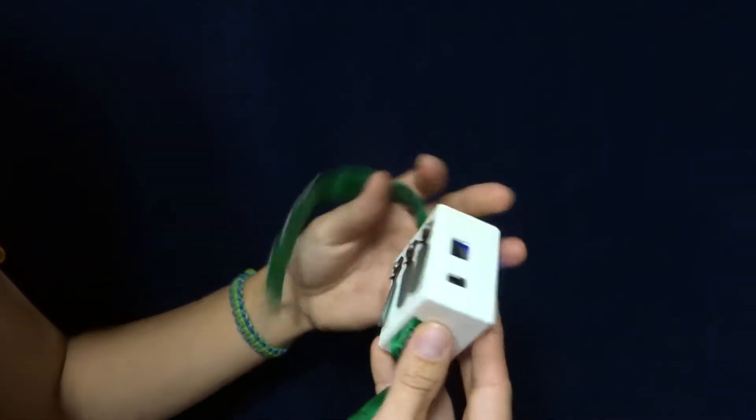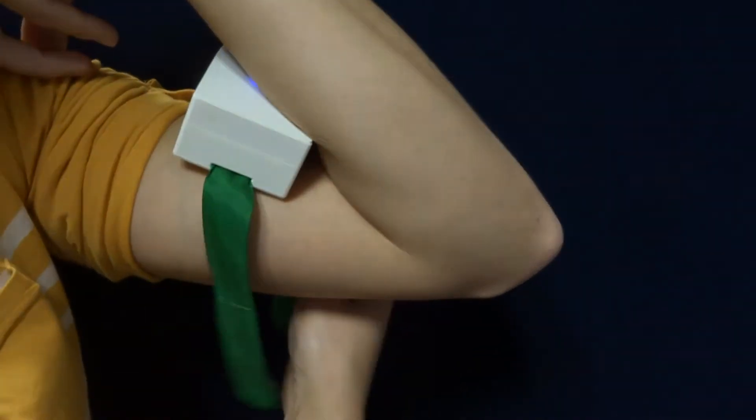Therefore, during neuromuscular rehabilitation, a physiotherapist or a doctor needs to monitor performance of exercises.